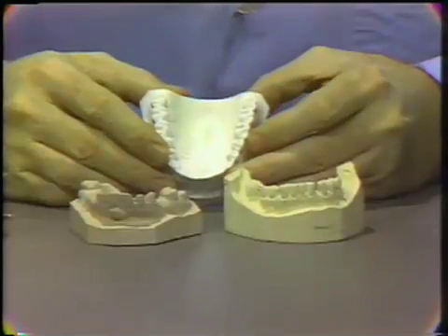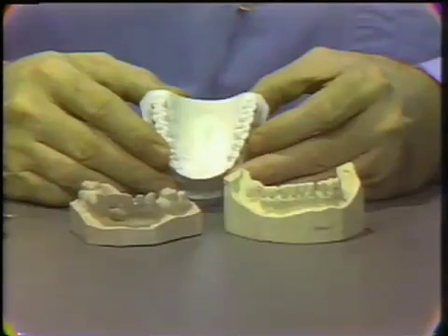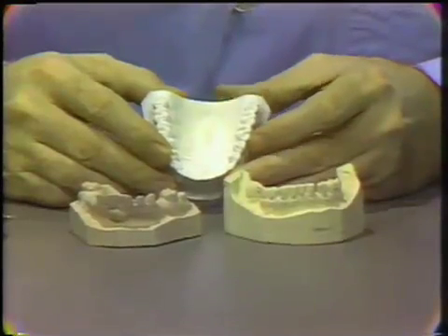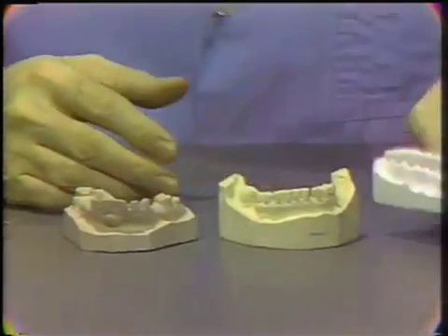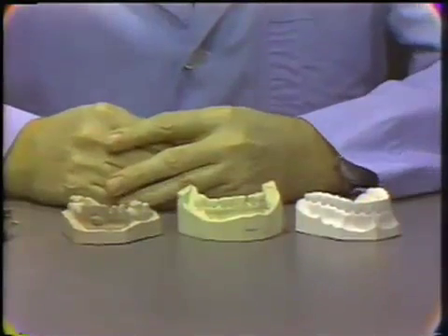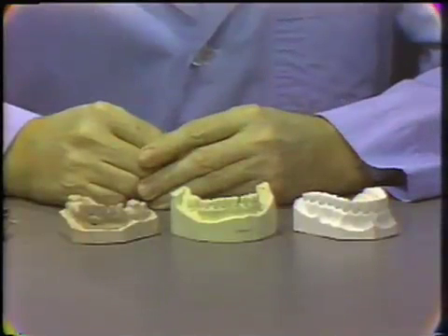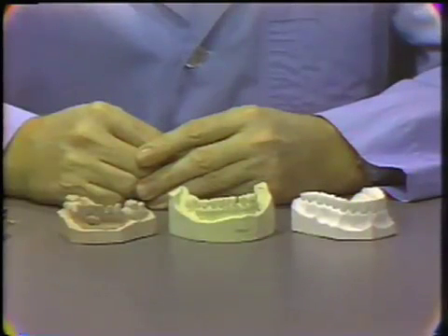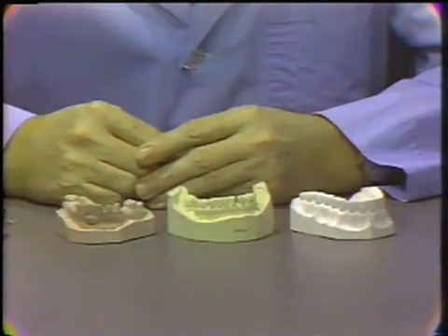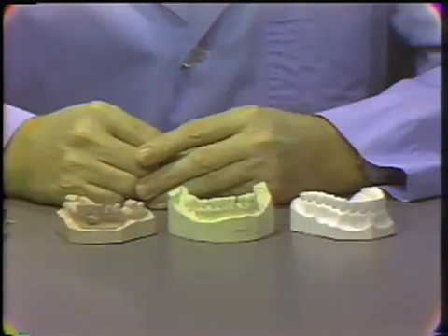The cost of these materials also increases as you go from model plaster to improved stone. These gypsum products have the advantage that they can be used with almost any impression material, which is not true with a number of the other materials we'll describe.